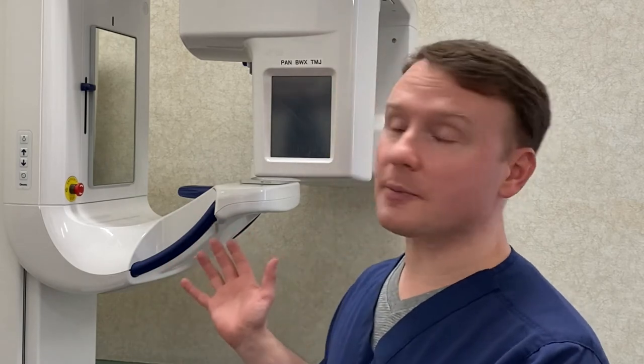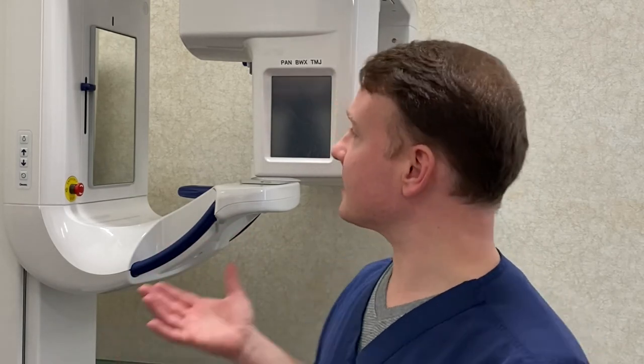What this type of x-ray does — a panoramic x-ray — you might wonder, what is this thing that spins around our head? What are we seeing, what's it doing? Well, what it's doing is it's basically capturing an image of your jaws from a certain point.